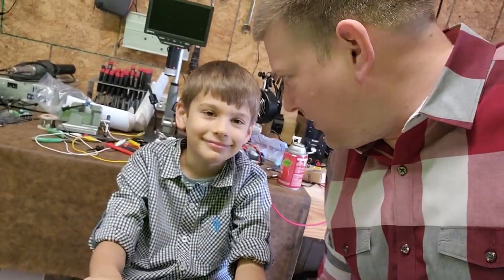Hey everyone, welcome back to Better Biomed. Today we're in the middle of our Christmas photos, which is why we're dressed up - we're not normally this fancy, especially on a Saturday. We got a box from BC Group, and this is going to be pretty impressive. It's a smaller size box than what I've received in the past, which means there's probably only one item it could be.